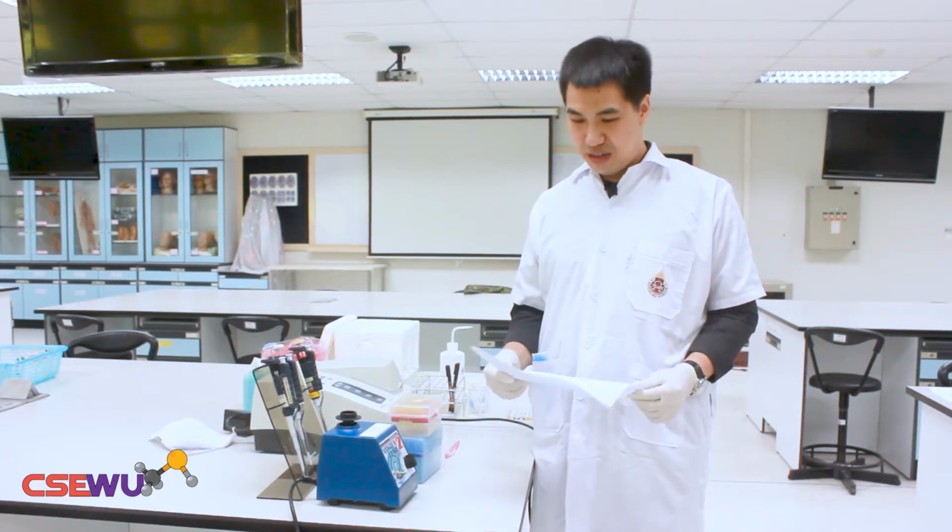For glucose determination, you can use the Benedict test, as you have learned already, maybe in your high school. But today we're going to use the enzymatic assay to determine the blood glucose concentration. Why do we need to use the enzymatic assay for this laboratory? This is the question, and you should discuss this in the report.